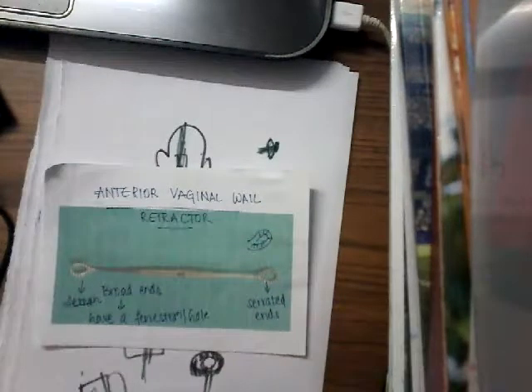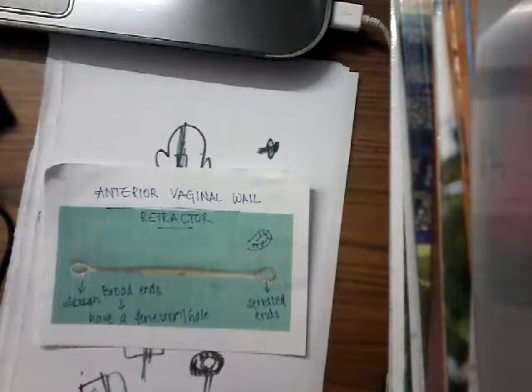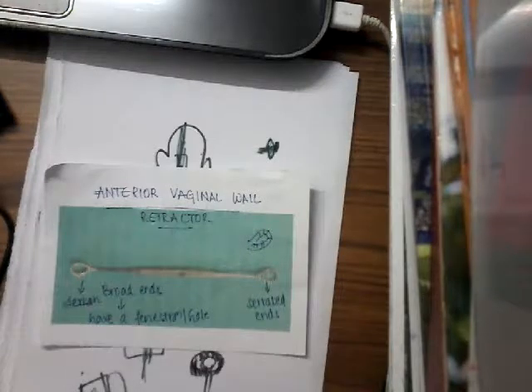Hello friends, welcome to a new lecture today. Now I would like to discuss about the anterior vaginal wall retractor.